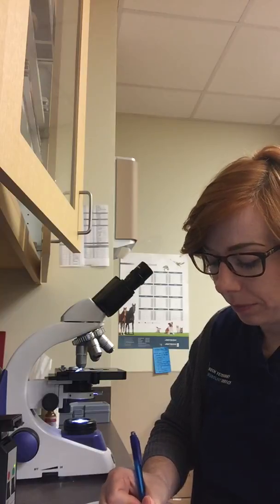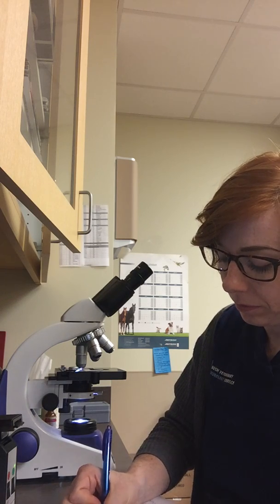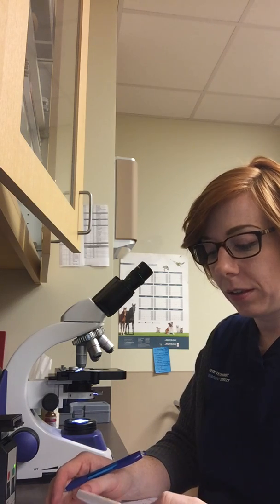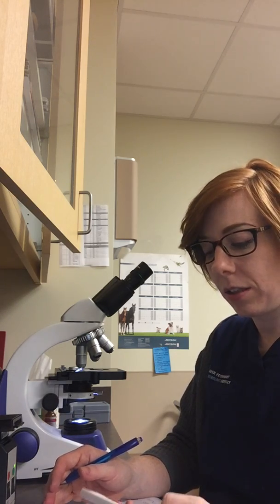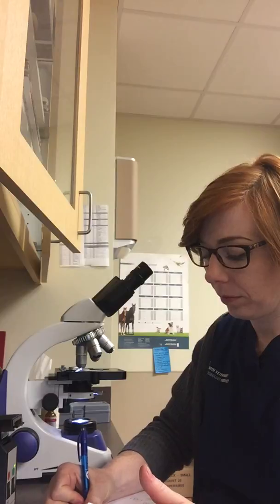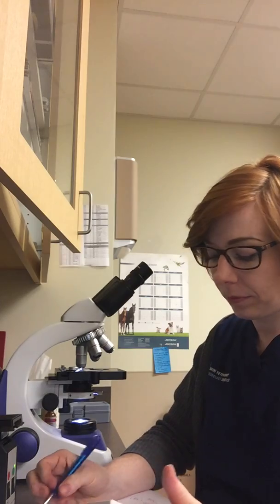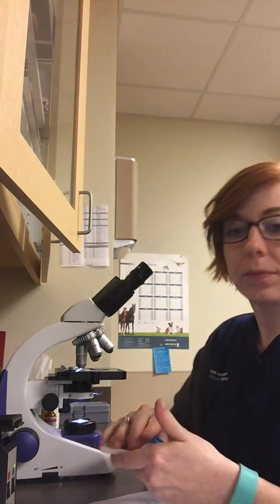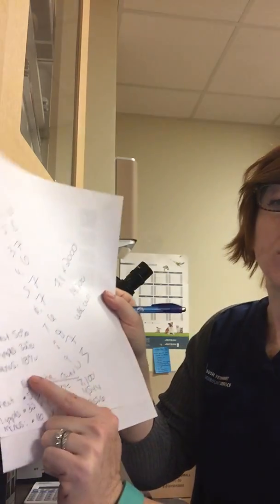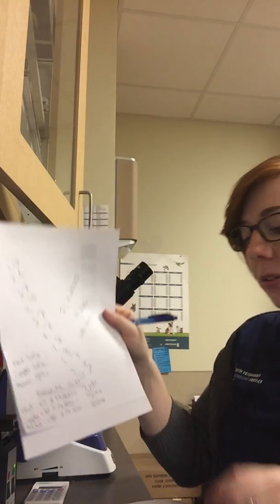With the monos. So for my absolute count here, I made the percentages decimals, and then I times it by my white blood cell count, which was the 14,000, to get the absolute count.